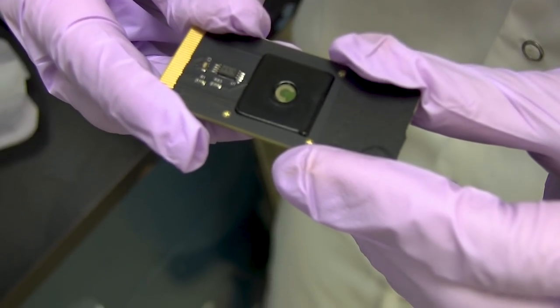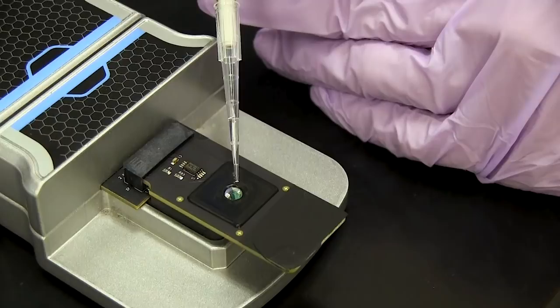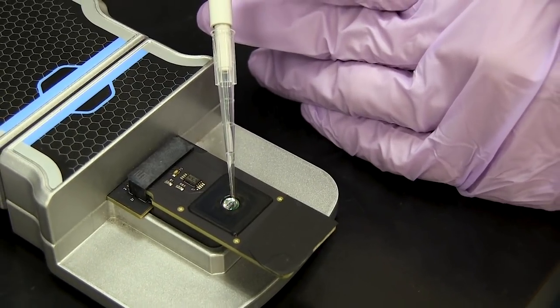Let's say you have a DNA sample from a patient and you want to make sure that the gene you're interested in is a healthy gene. You introduce that to our device CRISPR chip and then CRISPR chip will start looking for the DNA.